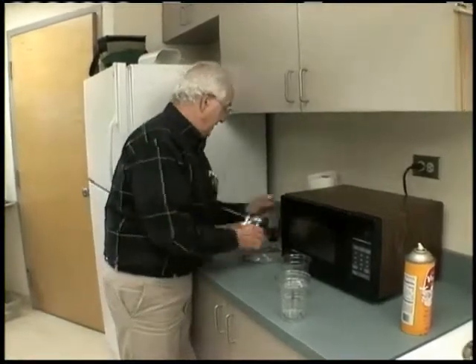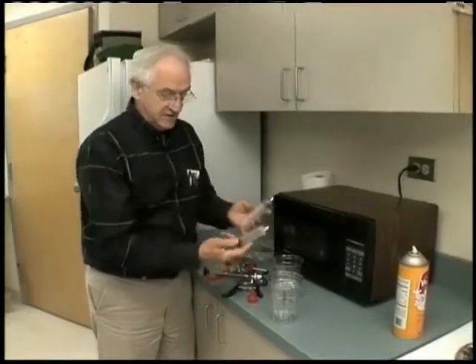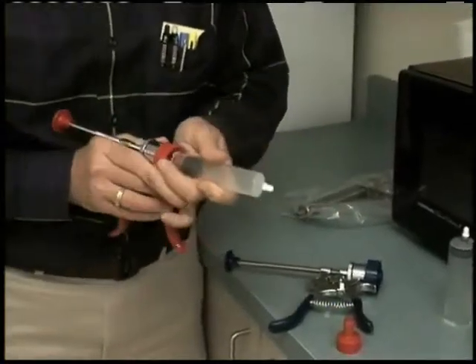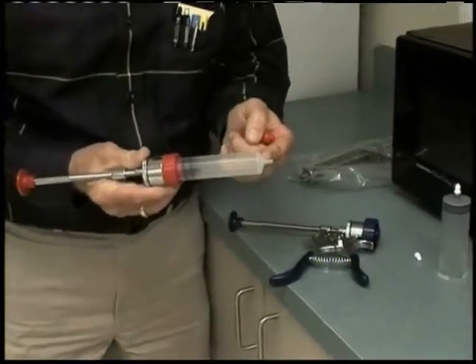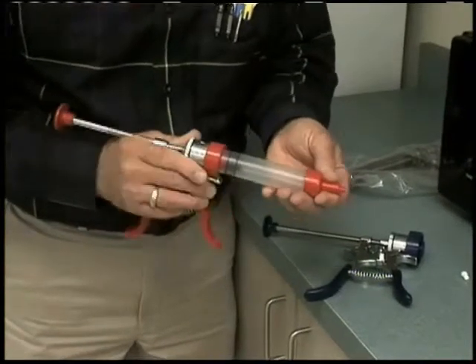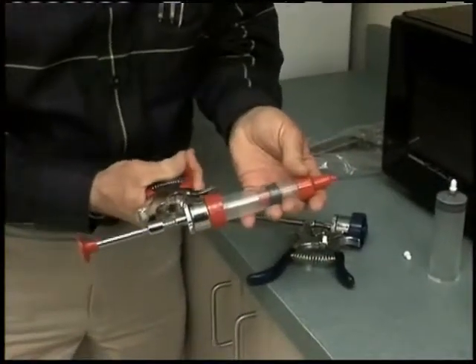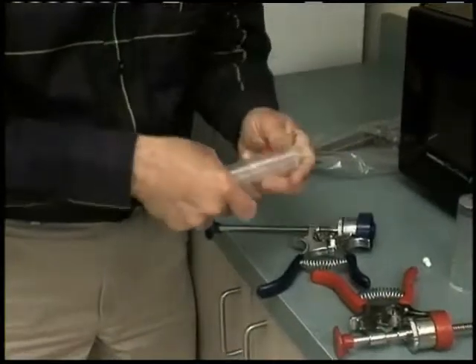One other option is you can buy automatic pistol grip syringes that have sterile components from the manufacturer. Right out of the package, this entire unit is sterile. Put the unit together — it slides in. Put on an appropriate size needle: one inch for intramuscular, or three-quarter inch down to half inch for subcutaneous. Slide the needle protector over the top, which will keep the needle from breaking. Now it's ready to go — suck up your vaccine or medication, and you have a pistol grip syringe that came from the manufacturer as a sterile unit, ready to use.